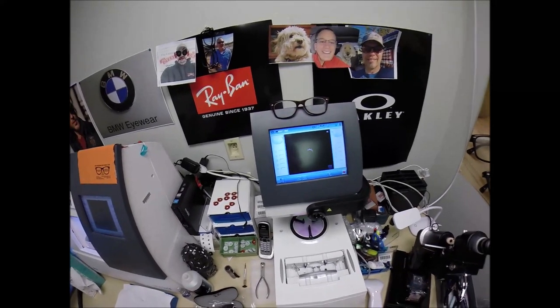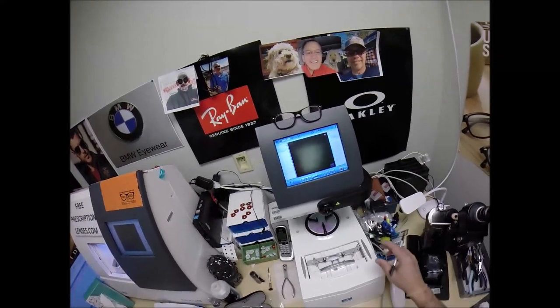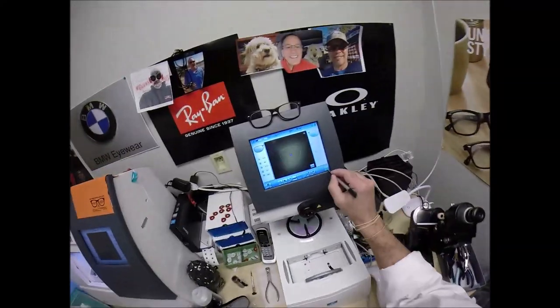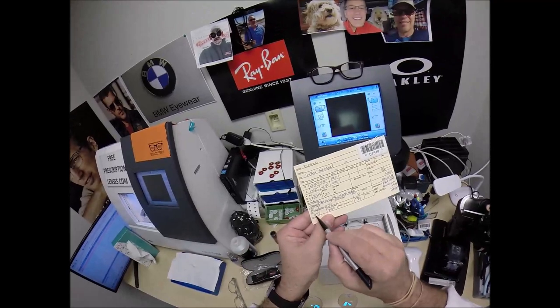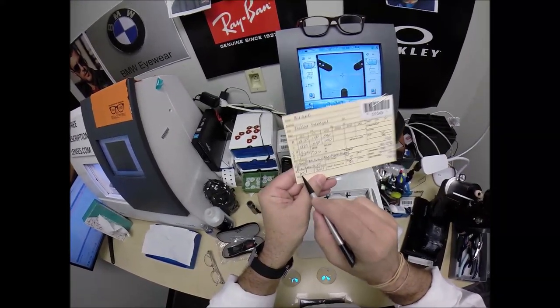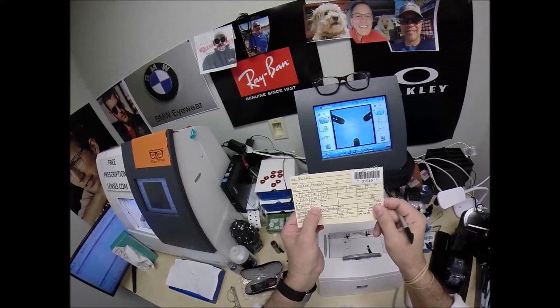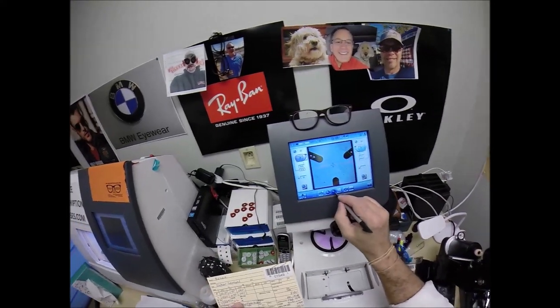In just a moment, that shape will pop up on the computer screen. The pupillary distance is 32.5 for each eye — that's 65 divided by 2. That's where my computer starts. I do want to raise the invisible bifocal height up to 23, and change the layout screen to progressive, which is another name for the invisible bifocal.